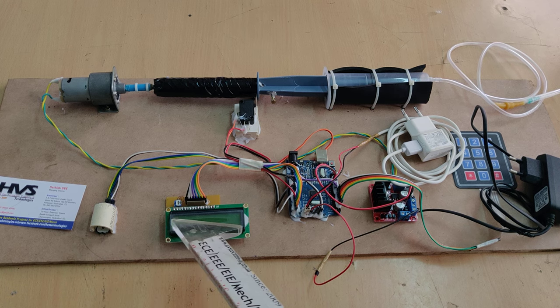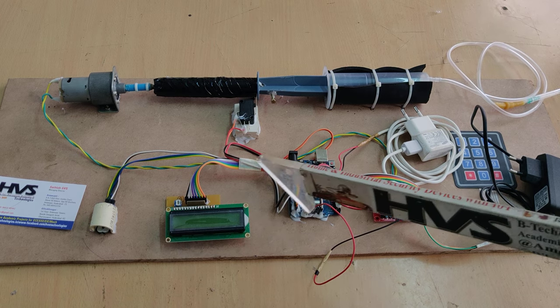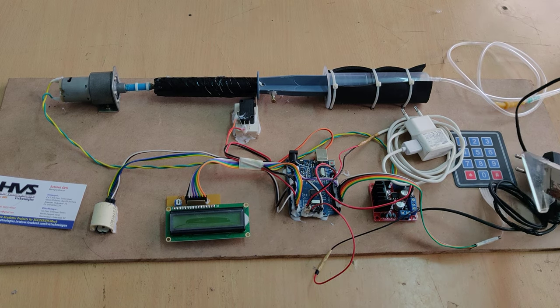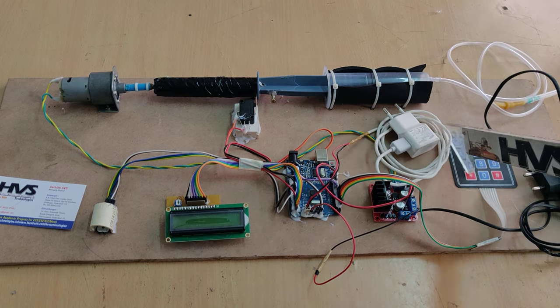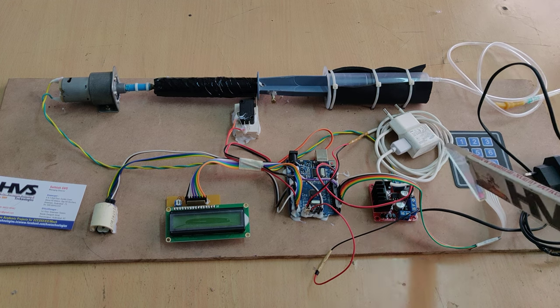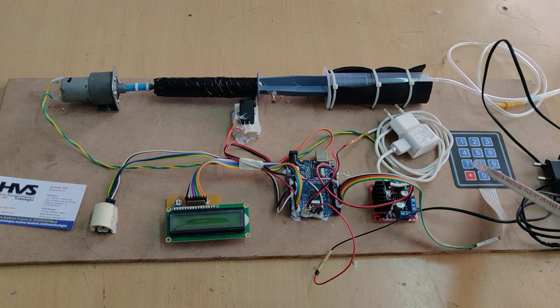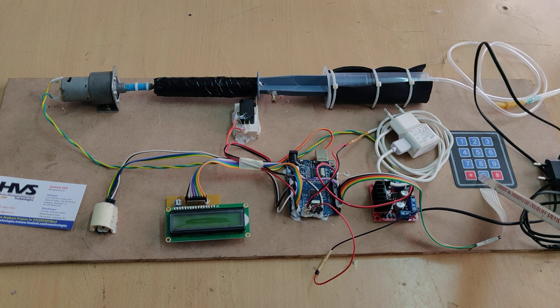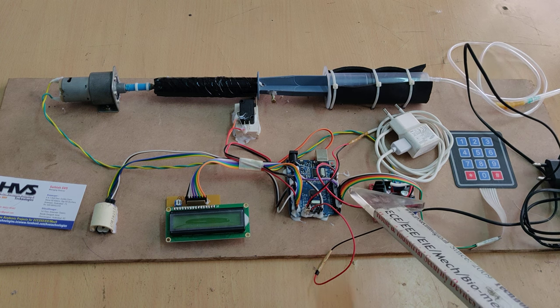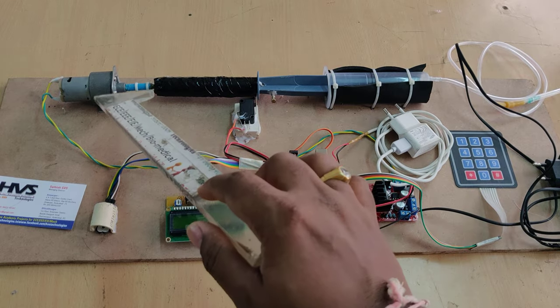The doctor or anesthesia person needs to enter how many levels of anesthesia should be injected into the patient's body. Those levels are entered from this 4x3 matrix keypad, and based on the entered levels the system switches on the motor.